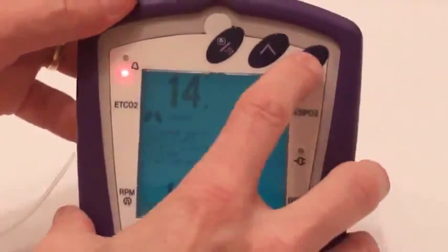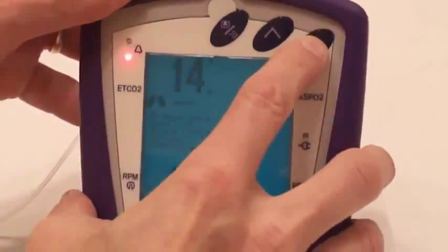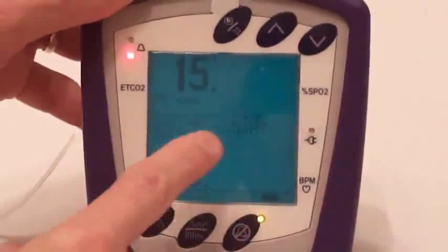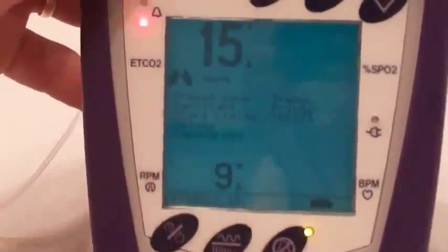But in this case we're going to go on down to the exit on the menu button. As you see right there a little arrow is pointing on the exit. Then you press menu button and you're right back where you were.